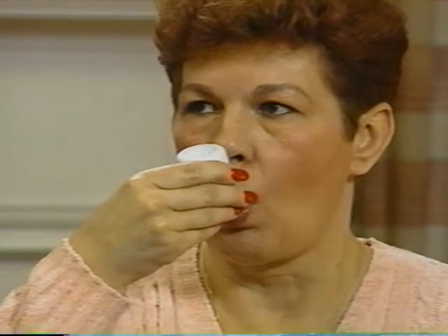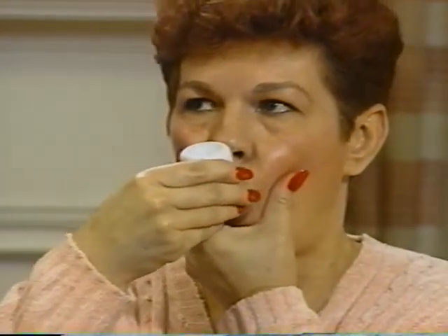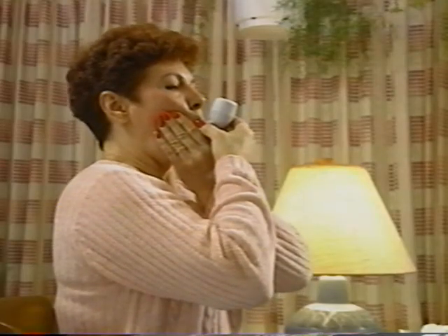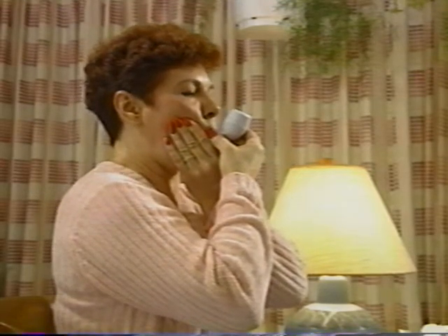While performing flutter therapy, it is important to keep your cheeks as stiff as possible, since the vibrations produced by the flutter are wasted when they are used up in your cheeks. Look into a mirror or hold your cheeks flat with your other hand to help keep your cheeks stiff.